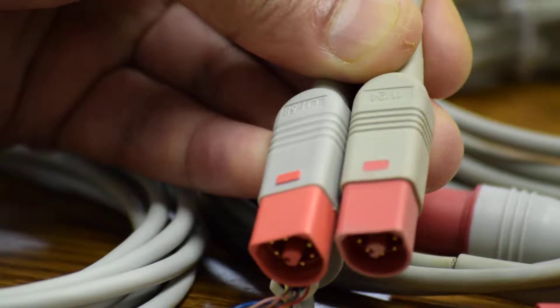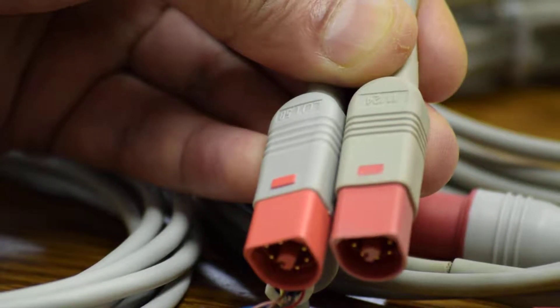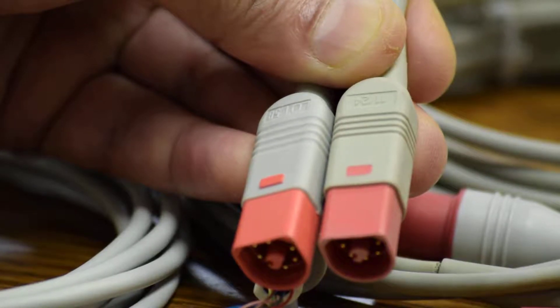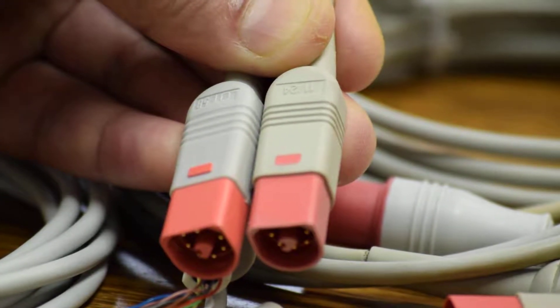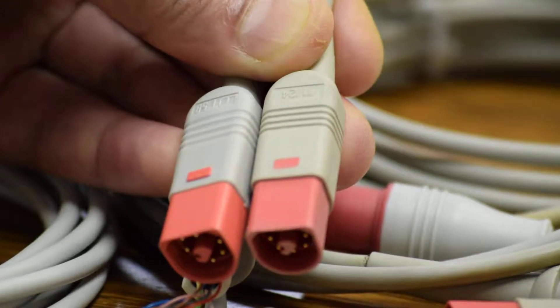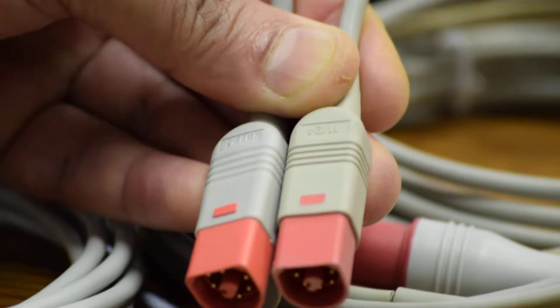The distinctive technical difference is that the original connector is drip-proof when potted. The overmolded aftermarket connector has more leakage current, which intermittently keeps varying. There is no way to address spurious noise problems arising from the overmolded connector, due to fluctuations of impedance and weather conditions.